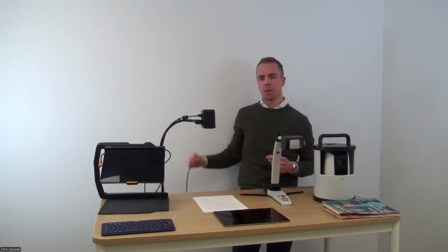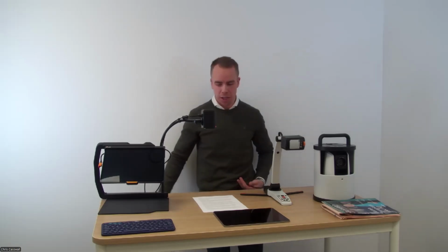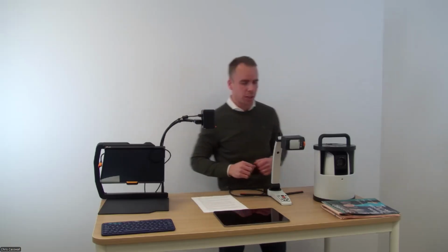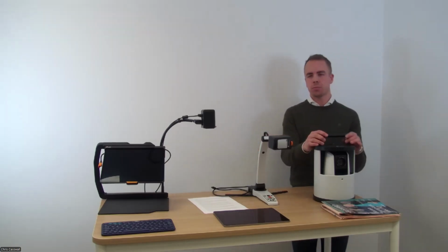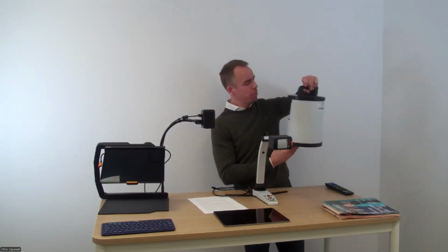None of these comes with a battery. They are both using power from the computer or the iPad, whatever I'm using. So I do plug in the USB-C cable, and then we will come back to that product in just a little bit. The third product, the MagniLink Air Go, a 12-pound product that is transportable, movable.